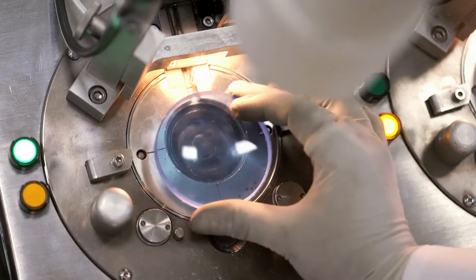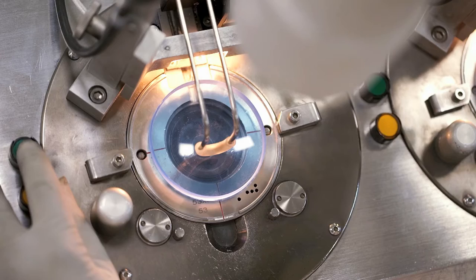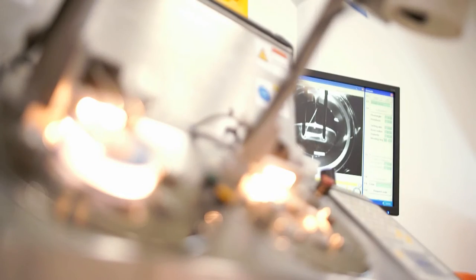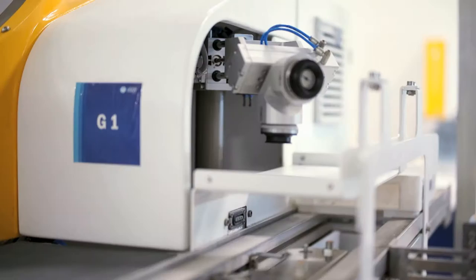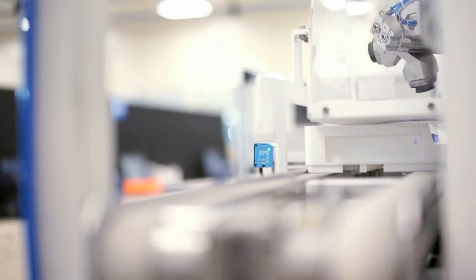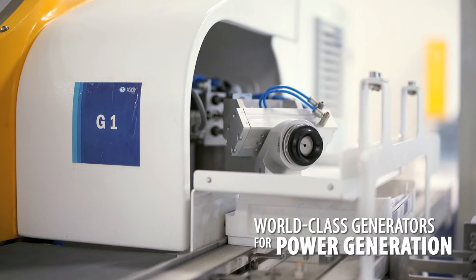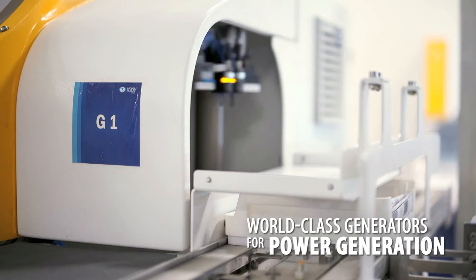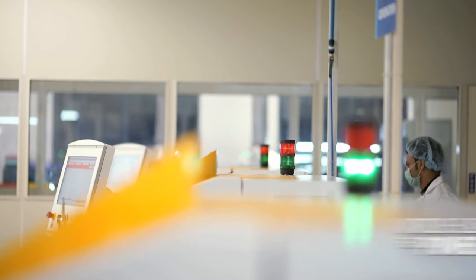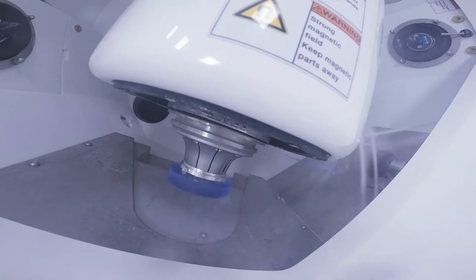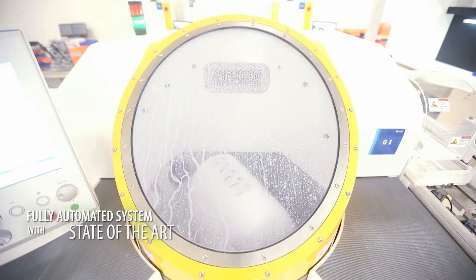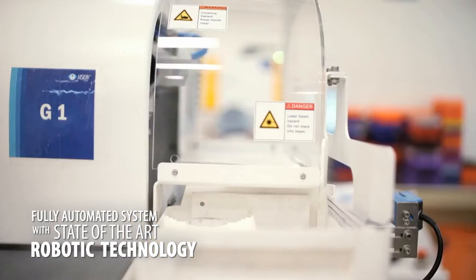The blanks are then blocked under controlled temperature and pressure with metal alloys, and then the ordered RX is generated in world-class digital free-form lens surfacing instruments. The entire process of lens generation is fully automated.